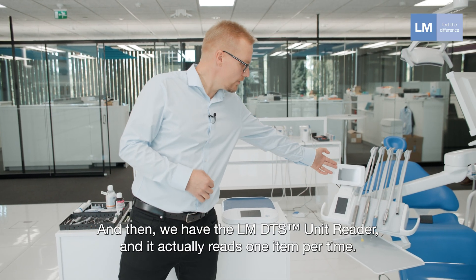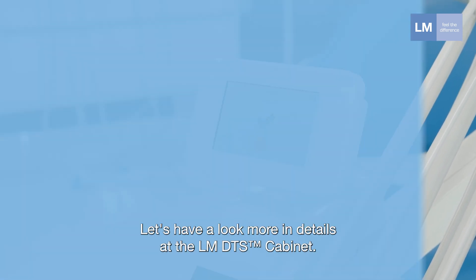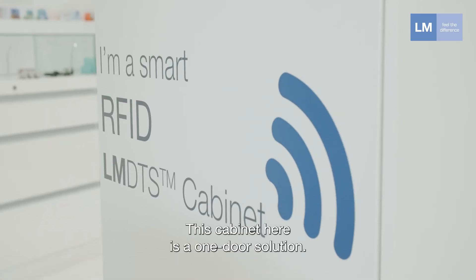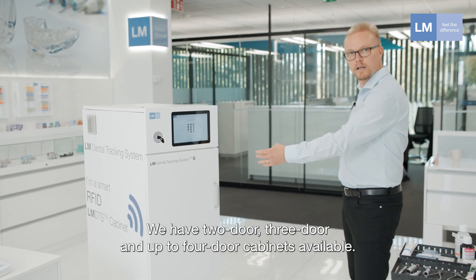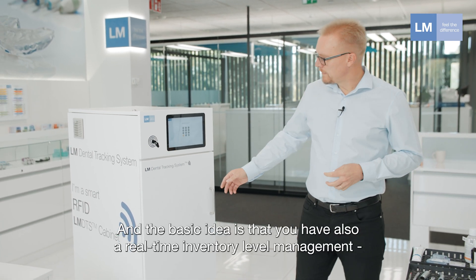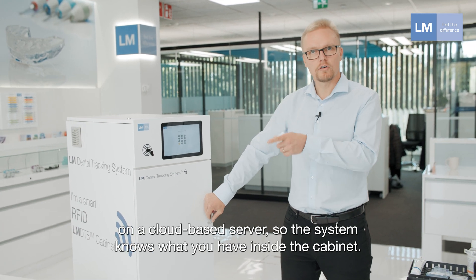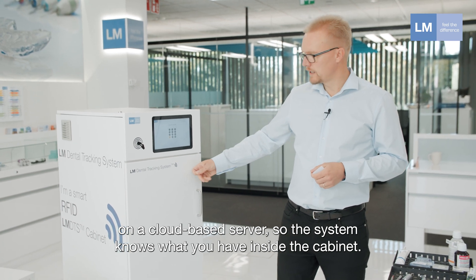There can be many different activities configured for each reader. We also have a unit reader that reads one item at a time. Let's look at the LMDTS cabinet in more detail. This cabinet is a one-door solution, but we have two-door, three-door, and up to four-door cabinets available. The basic idea is that you also have real-time inventory level management on the cloud-based server, so the system always knows what's inside the cabinet.